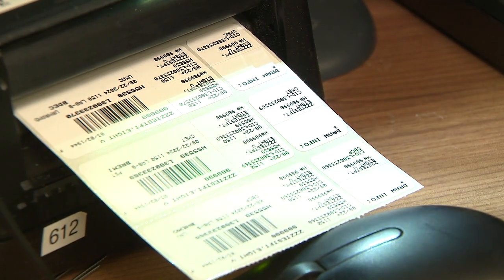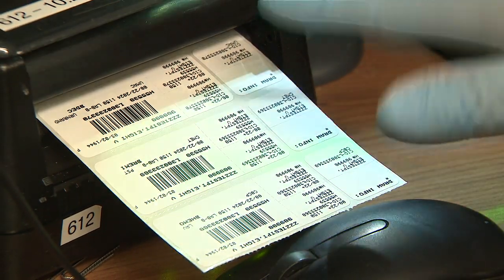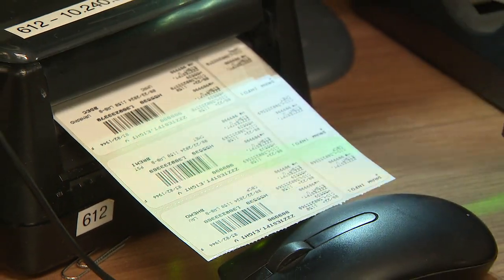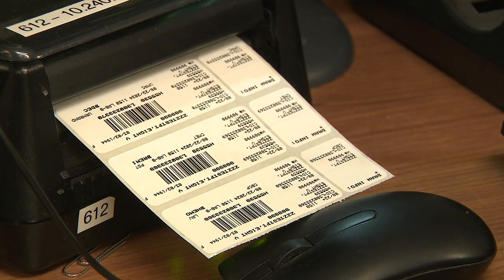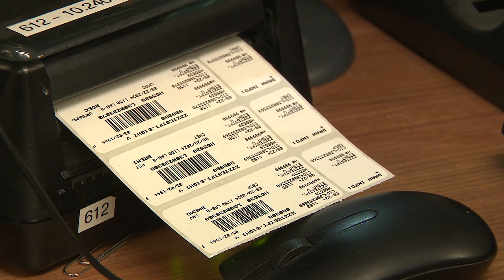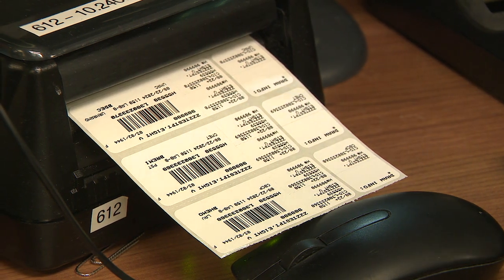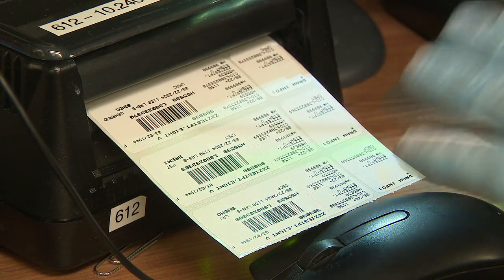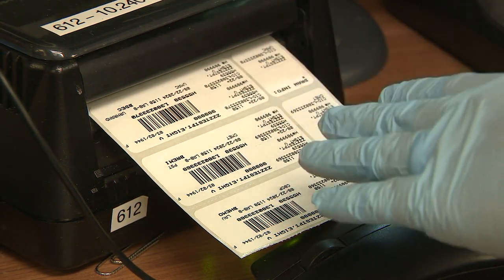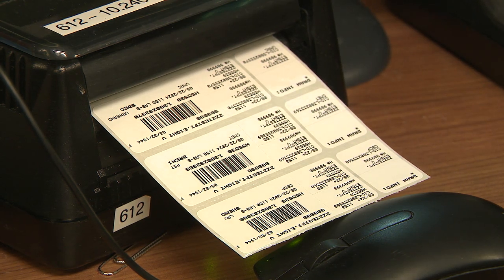When they come from upstairs, sometimes the labels might look slightly different. The labels that print off here are the labels that our instruments are actually going to read. For example, labels used by the clinic and our infusion center are what are called temporary labels — they are not able to be read by our instruments. So by doing what we just did — checking in the samples — this transfers all that information into a machine-readable label that we can then stick over the original tube labels.